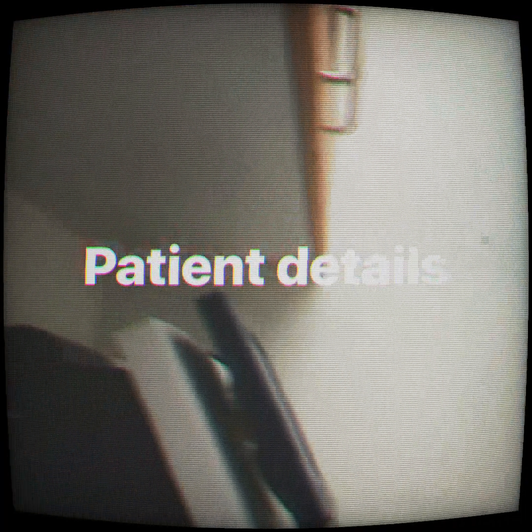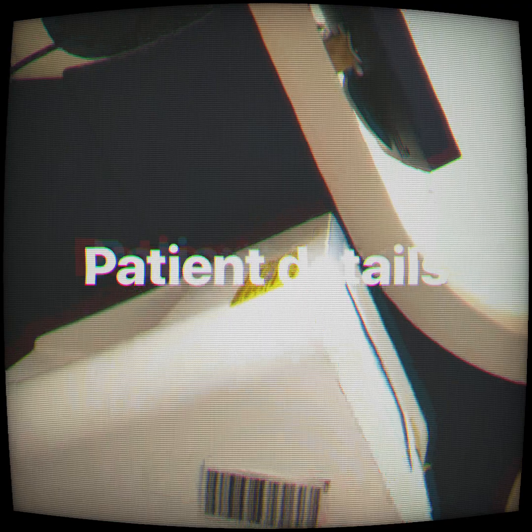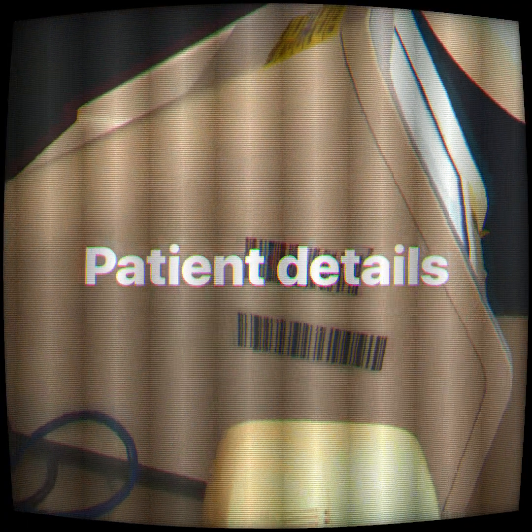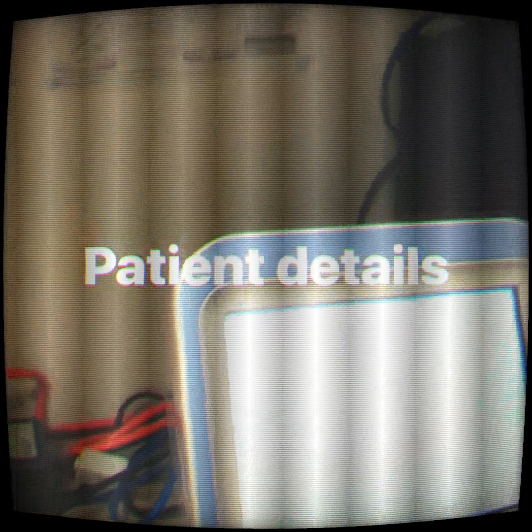Go to the first barcode for the login, which is HEMO, then press password, then scan the second barcode, and simply press login.